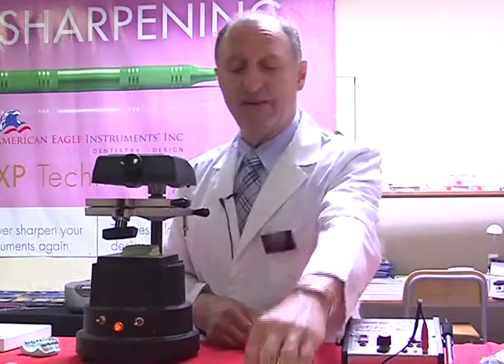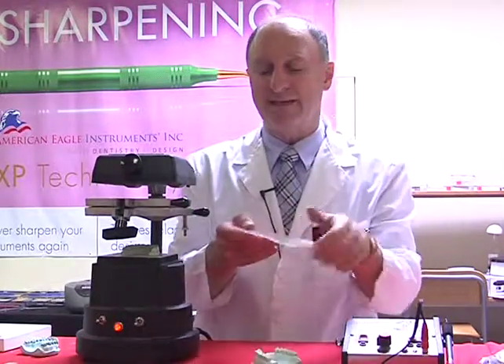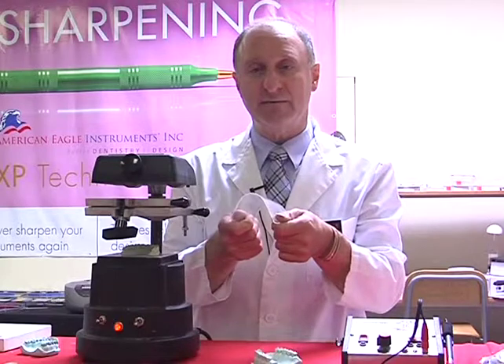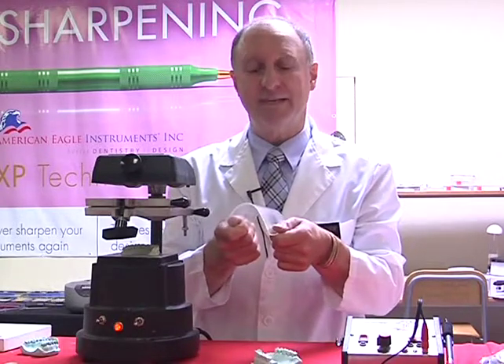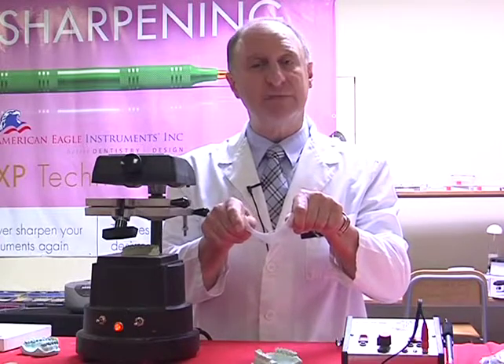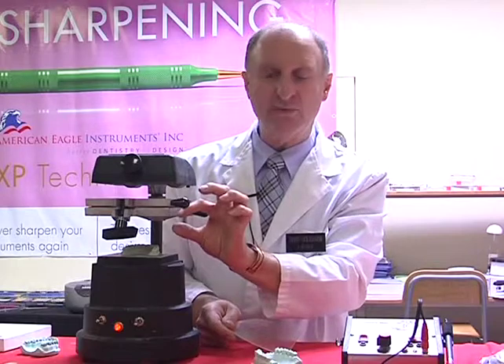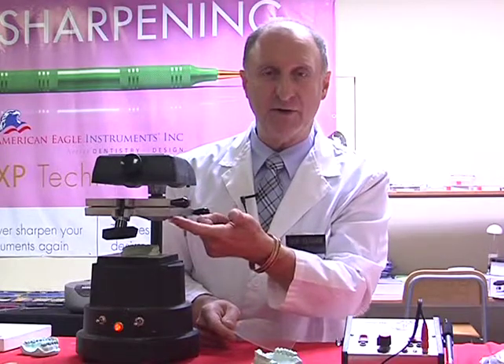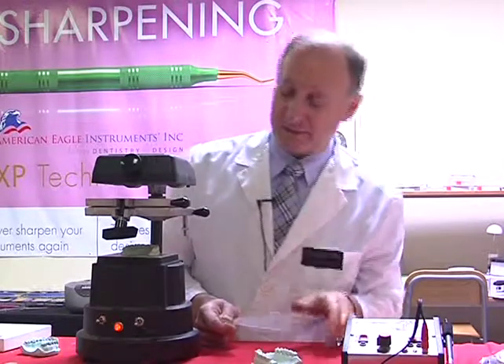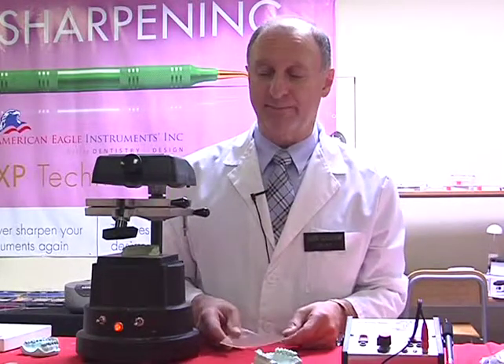So the first thing that happens, and let's hold up another piece of material just to give you an idea of what will happen when it's heating, is that it actually goes upwards to the heating element, then it goes a little bit wavy, and then it droops down. From the time it droops down, we want to let it drop around 1/4 of an inch from the bottom part of the vacuum forming unit. Once it does that, we know we've got sufficient timing.